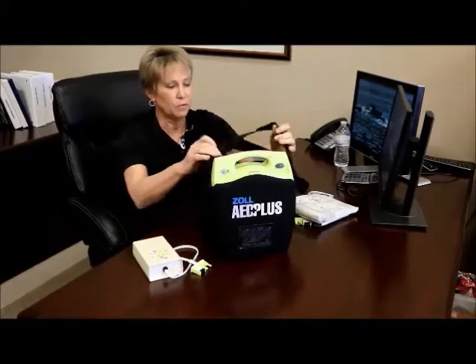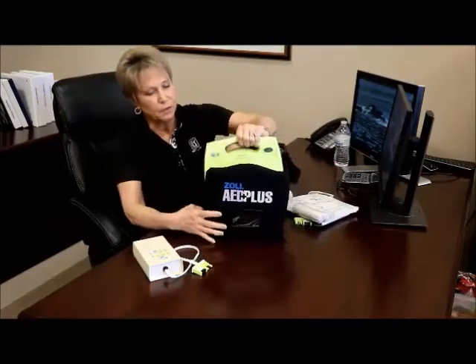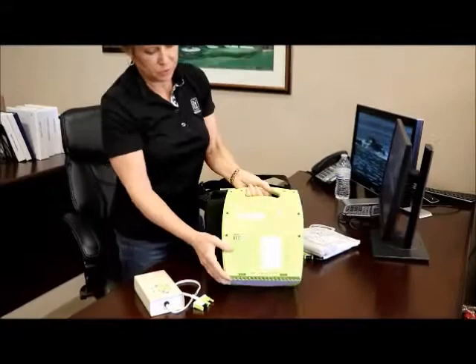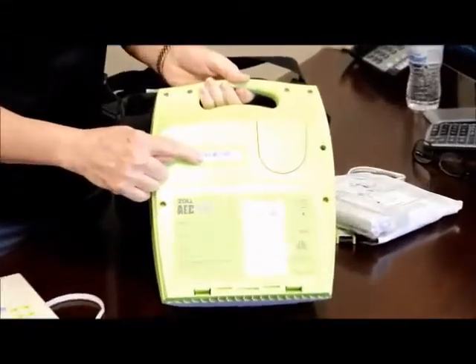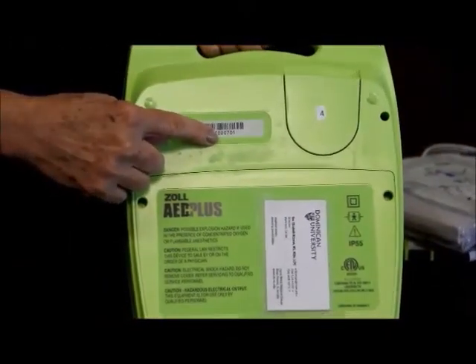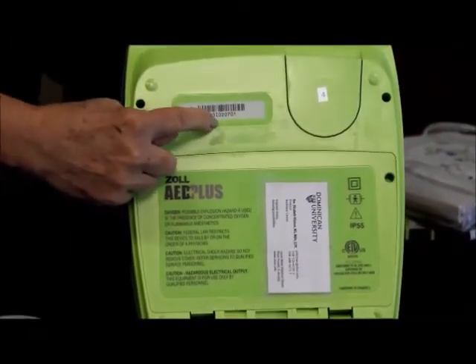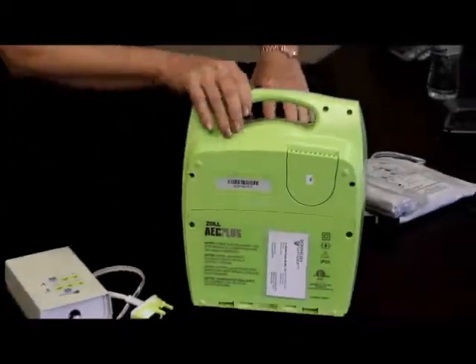When you find the AED, note where it's located so we can tell which ones. The first thing we're going to look at is the serial number on the back. It's going to start with an X. The next two digits stand for the year it was made, the next digit is the month, and then the rest is the serial number. So note the serial number.